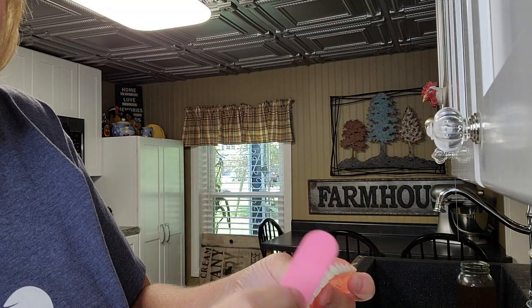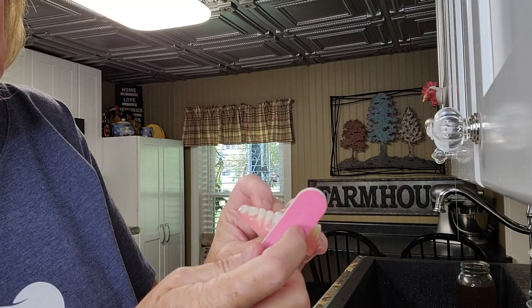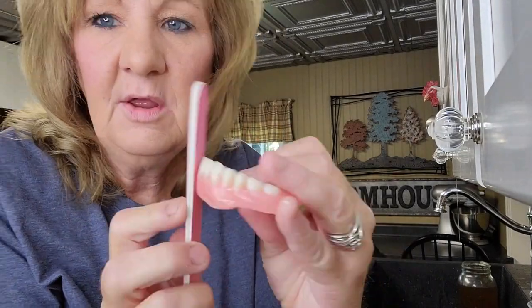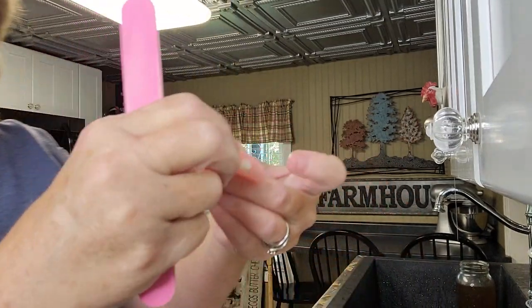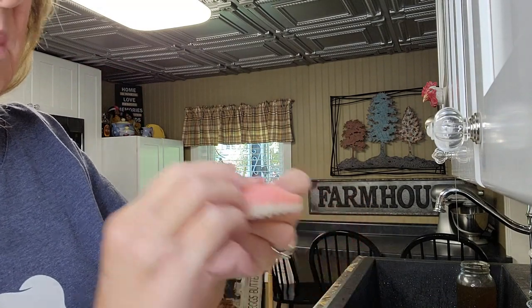This side over here seemed to need it too. Be careful around your teeth because you don't want your teeth to fall out. When I go this way I'm not touching my teeth. Every dentist in the world is probably saying go to your dentist — well, I will, eventually. I can tell in my mouth it's better. When I edit this video I'll look and see if it needs some more, and then I'll do more. But you want to file just a little bit at a time.